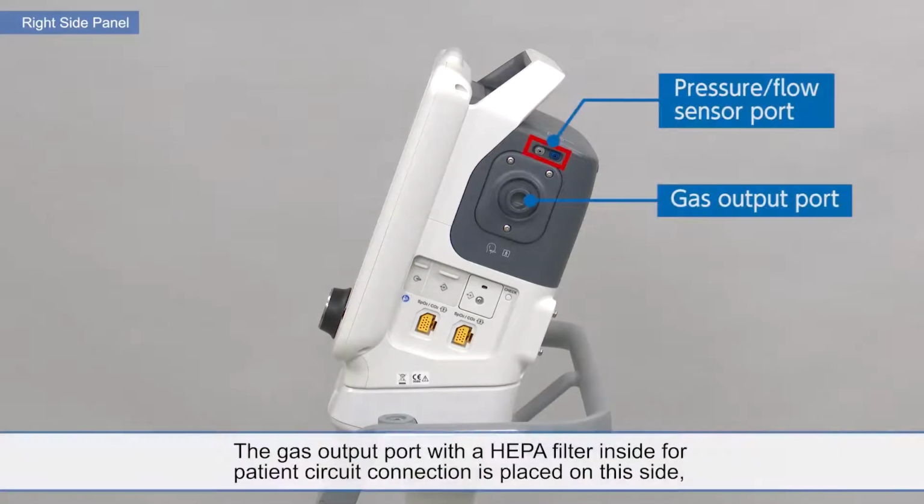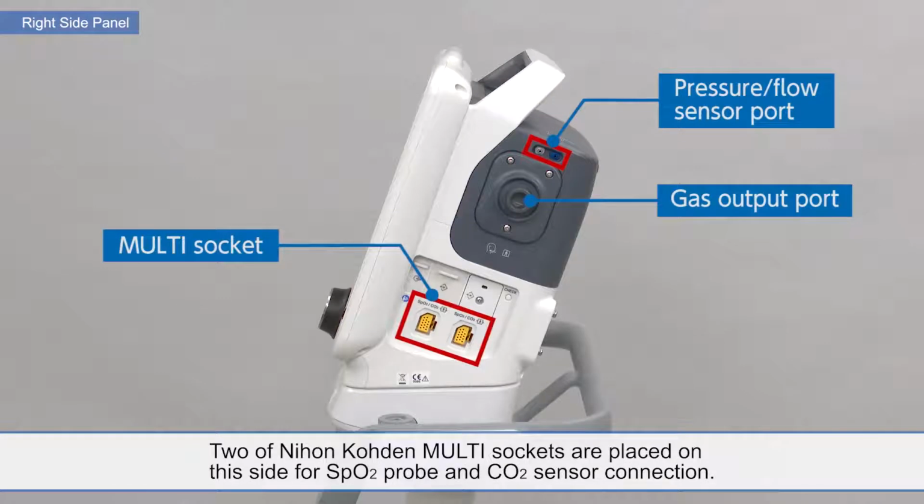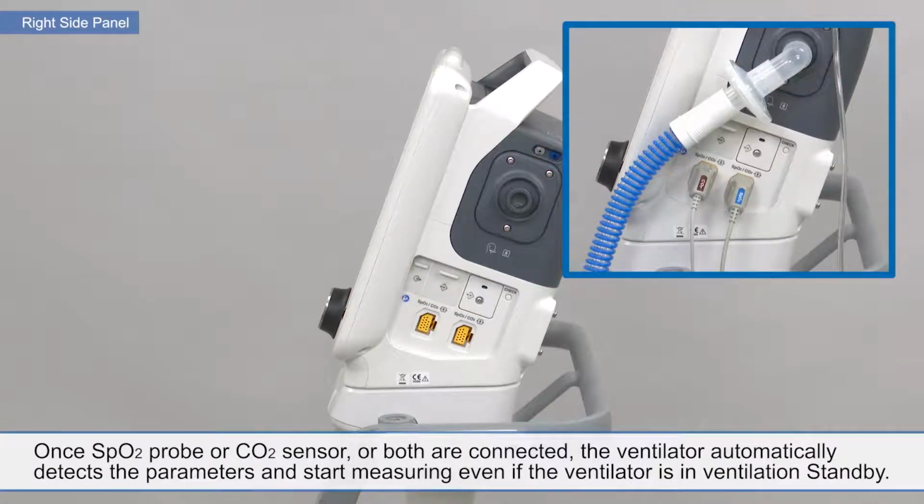The gas output port with a HEPA filter inside for patient circuit connection is placed on this side, and the pressure flow sensor port for pressure flow sensor tubing connection is placed above the gas output port. 2 Nihon Kohden multi-sockets are placed on this side for SpO2 probe and CO2 sensor connection. Once the SpO2 probe or CO2 sensor or both are connected, the ventilator automatically detects the parameters and starts measuring even if the ventilator is in ventilation standby.